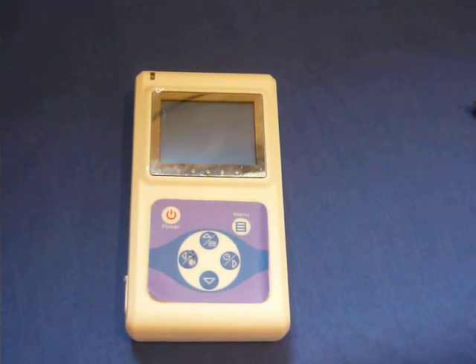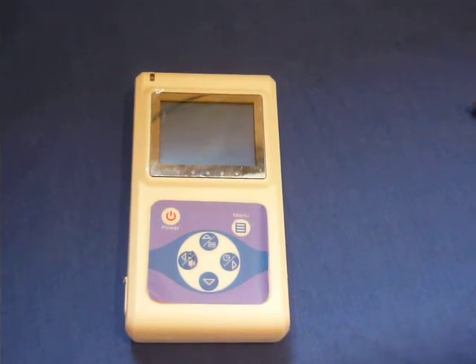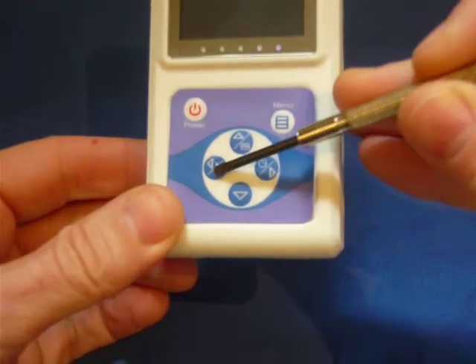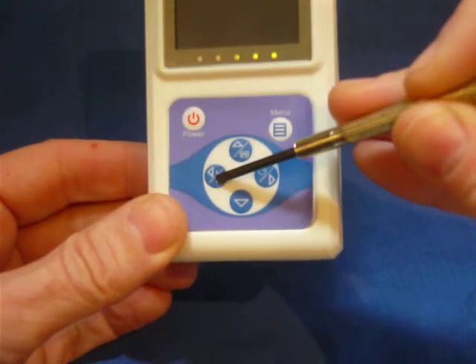Here is the Vetsense P02 Veterinary Pulse Oximeter with a damaged label. Normally these labels will last for several years, and pens and other instruments should not be used on the labels.